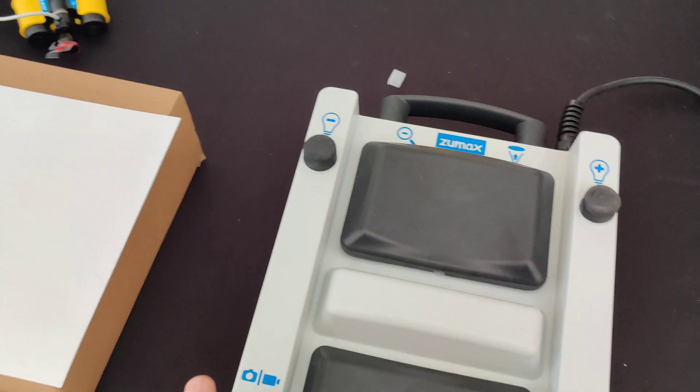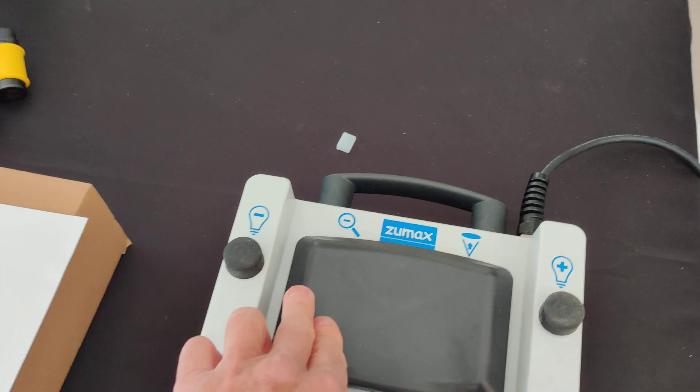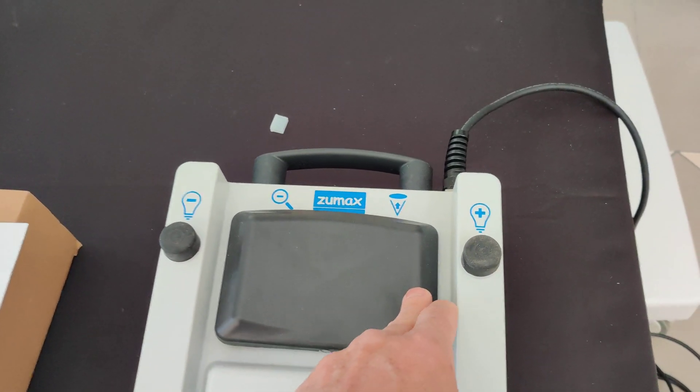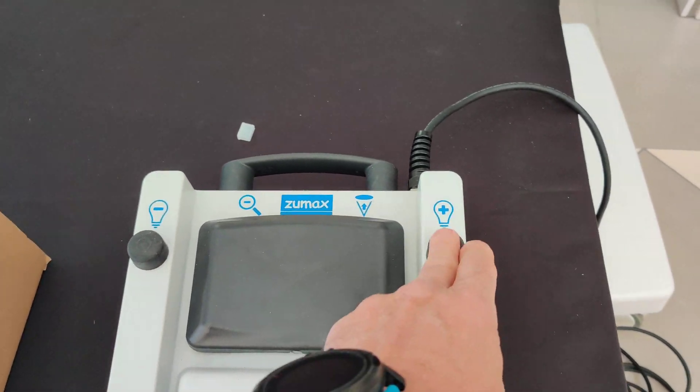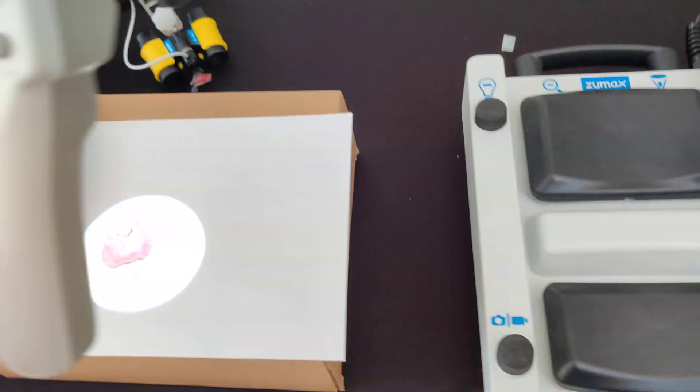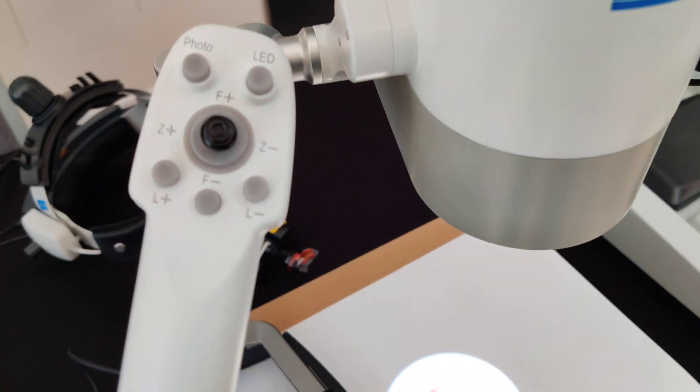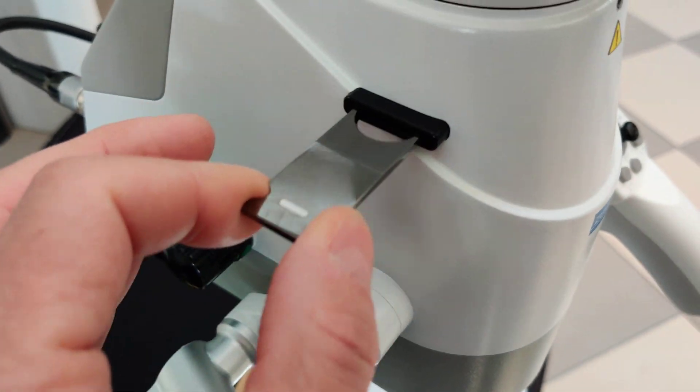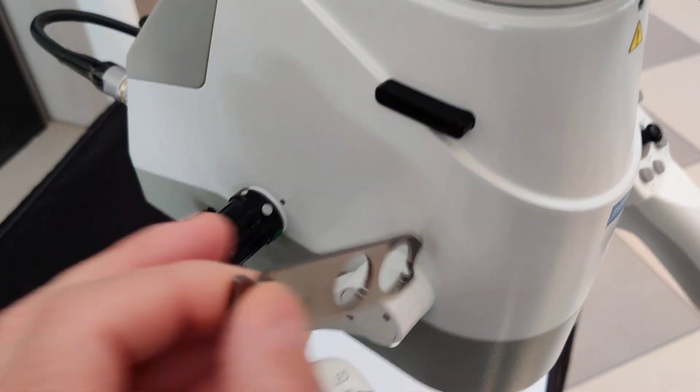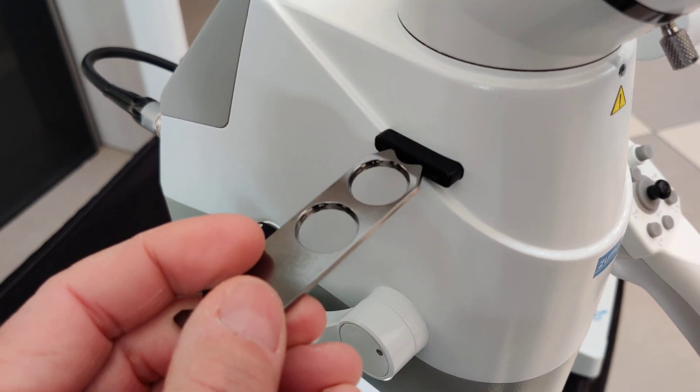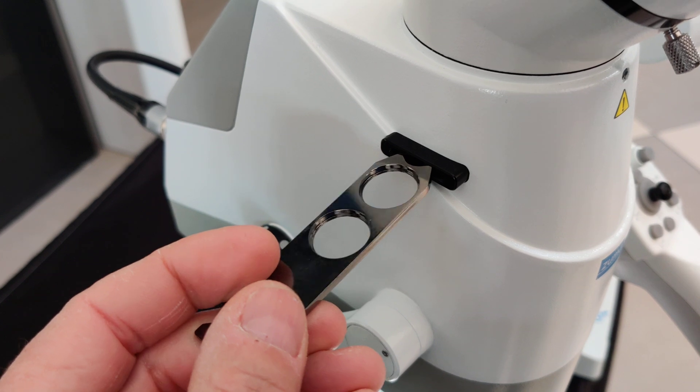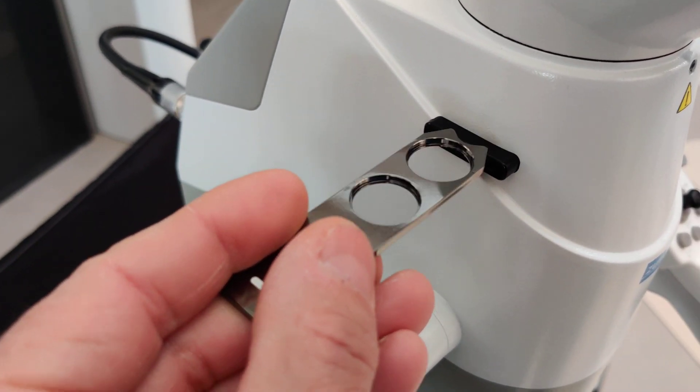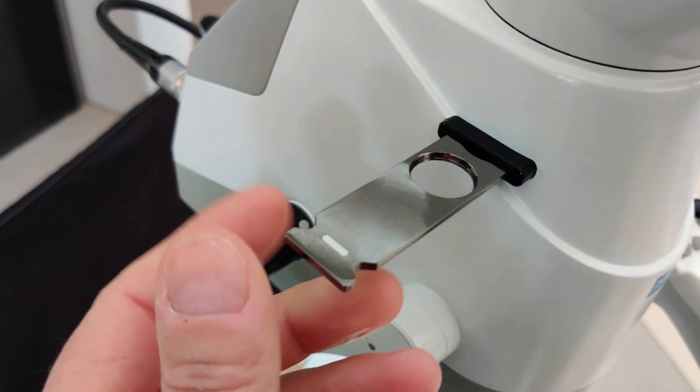Other things, as I said, we have the controls here with the zoom, with the magnification, with the light intensity, and with the photo, the same as you have here. Another thing that you have, this is the laser filter container. We can put the filter of the laser here according to the frequency, you put it inside.